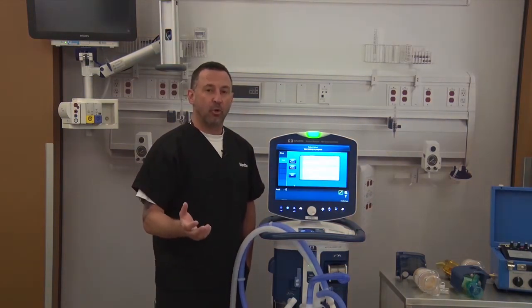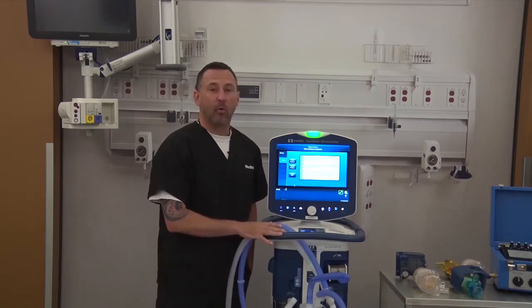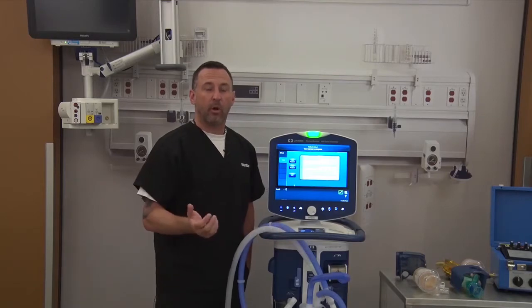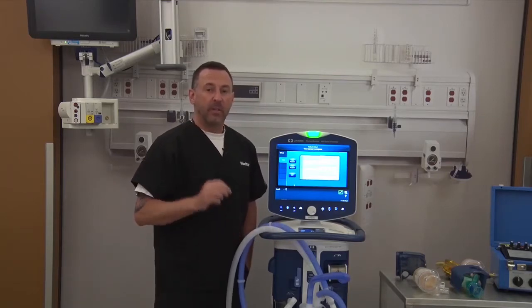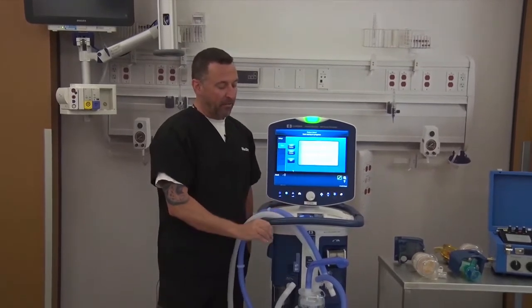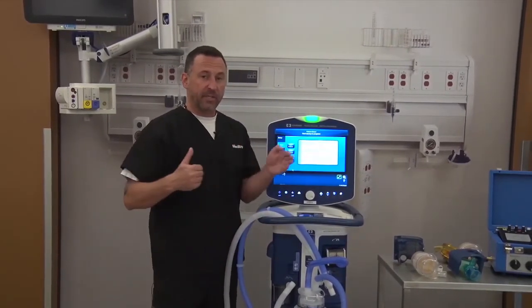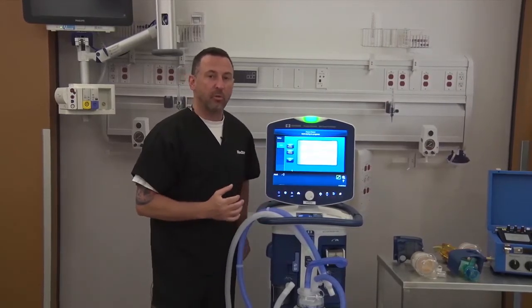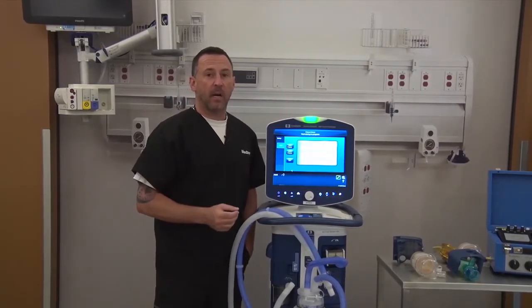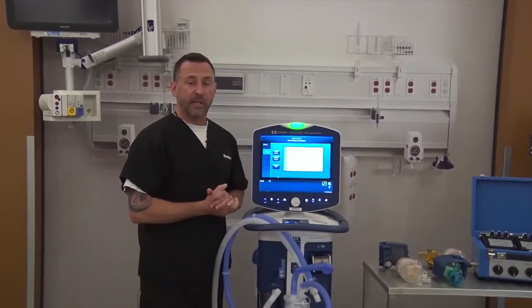Today I want to teach you, the user of the Puritan Bennett 980 ventilator, how to perform an SST, or what we call a short self-test. This always needs to be performed anytime you are modifying the breathing circuit. So for an existing patient, if you are adding, say, a spacer or something new to the breathing circuit, or of course anytime you are ventilating a new patient, as that would be a new breathing circuit setup.